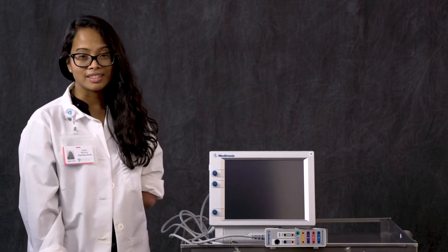So now we are going to go over the materials needed for our hypoglossal nerve stimulator case and how it works during monitoring and stimulation.